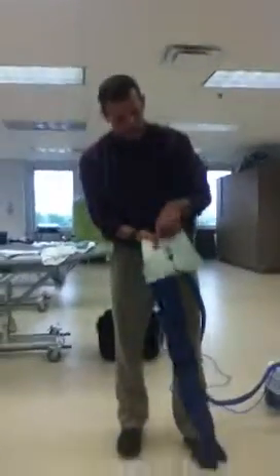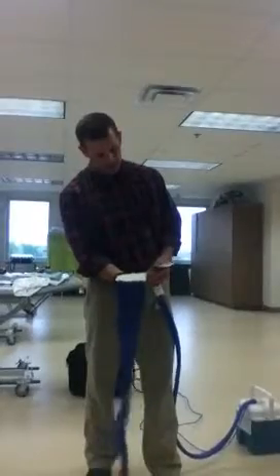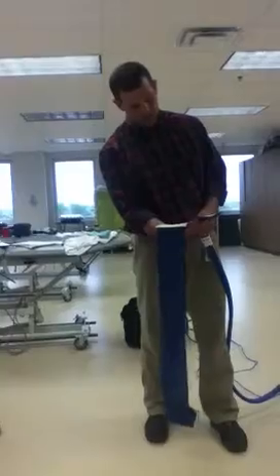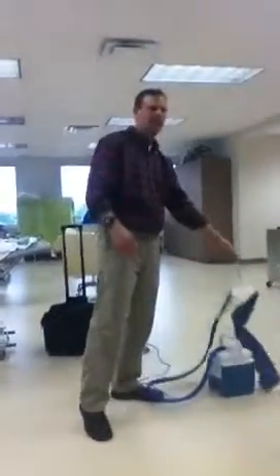You can actually see water oozing out of here and going down. It's coming out of here and there's little baffles in here that force the water this way around before it gets sucked back in. It's cold now — come up and feel it later, it's plenty cold. My pants are probably a little thick for it, but something thin — a sheet or a thin towel or something between you and it.